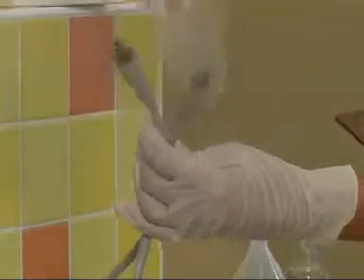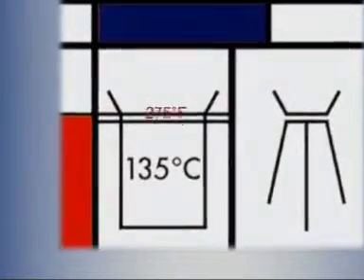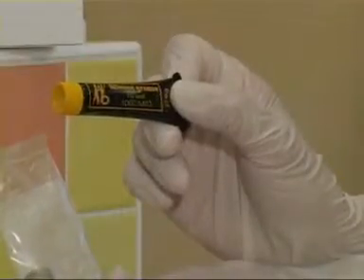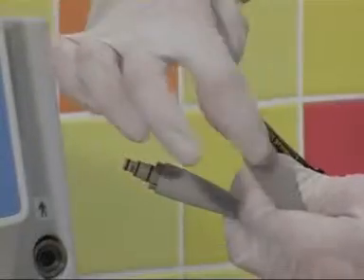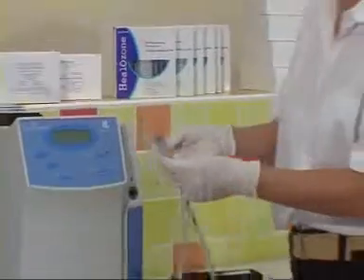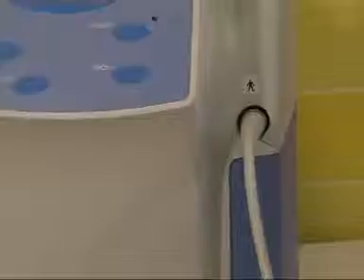We now need to connect up the handpiece and instrument hose. Before first use, you need to sterilize both — for instance in a steam sterilizer with sterilizing temperatures of up to 135 degrees Celsius or 275 degrees Fahrenheit. Apply silicone grease over the O-rings on the quick couplings and fit the end of the instrument hose into the console, making sure that it snaps in place. Give it a gentle tug to check that it is on properly.